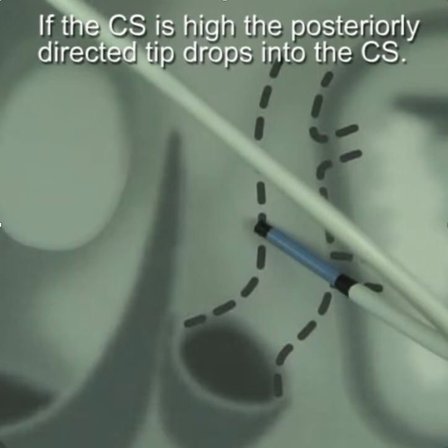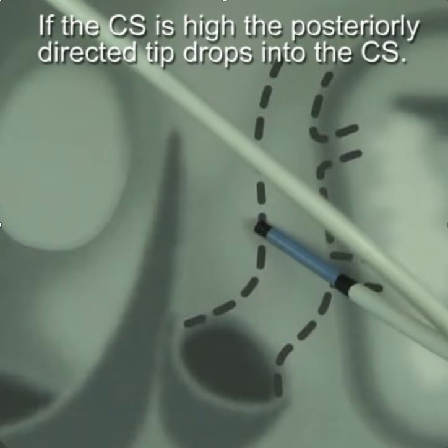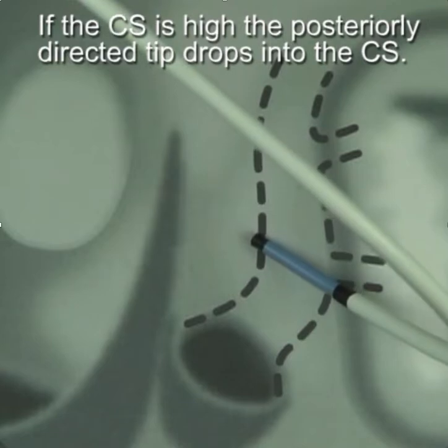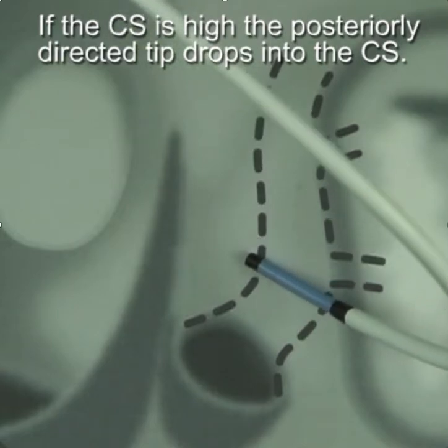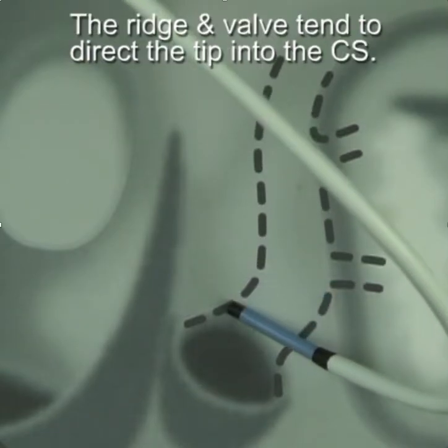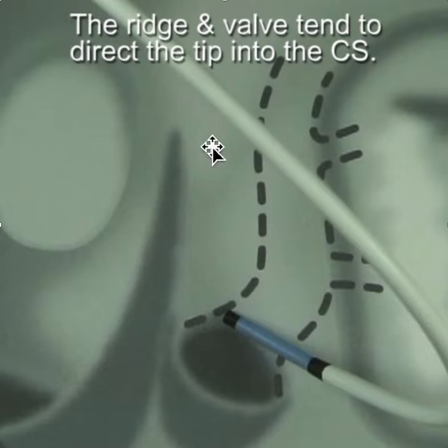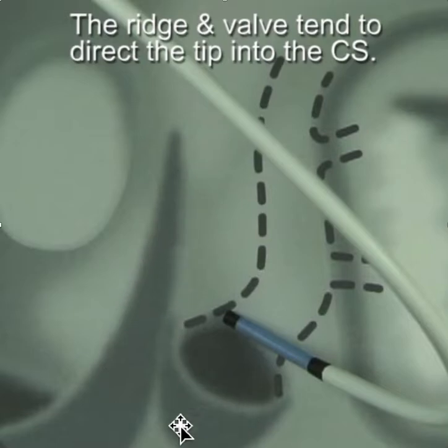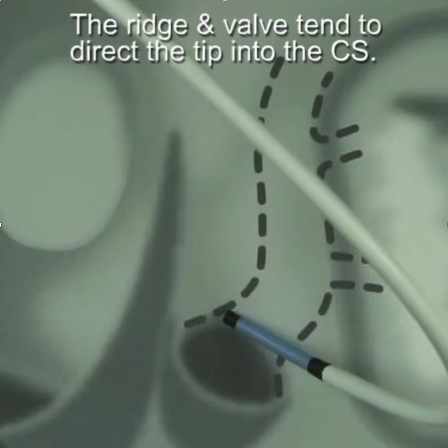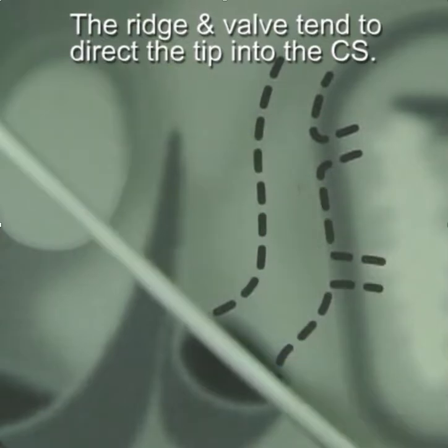If the CS is high, the posteriorly directed tip drops into the coronary sinus, and the ridge and the valve tend to direct the tip into the coronary sinus.